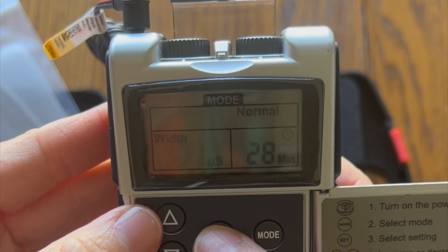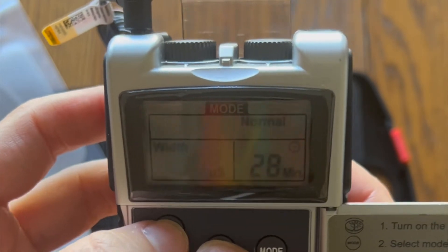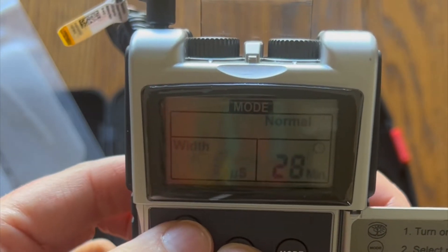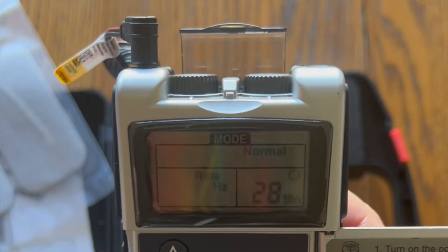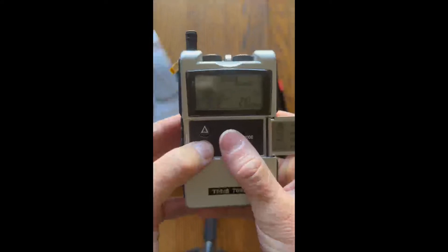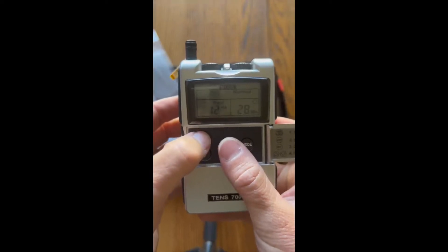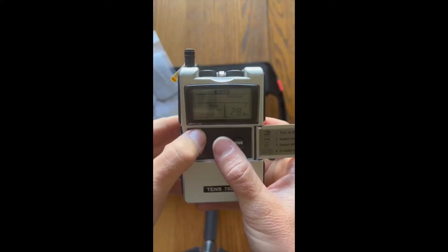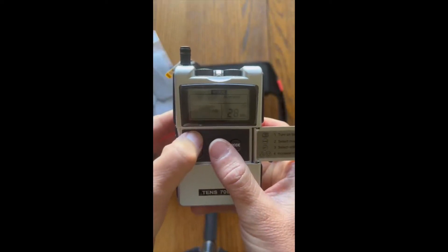For most of us we are going to change our pulse width to between 175 and 200 microseconds. You can see the lower end at 170 and then bring it up to 200. The pulse rate has a little more variability. If we are primarily using this for urinary urgency we are going to be setting the pulse rate to 10 to 12 hertz. If we're using this for incontinence, 20 hertz is recommended 30 minutes a day for 90 days, and 20 hertz was better than 75 hertz in the literature.